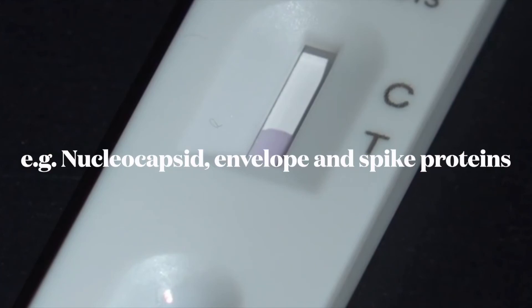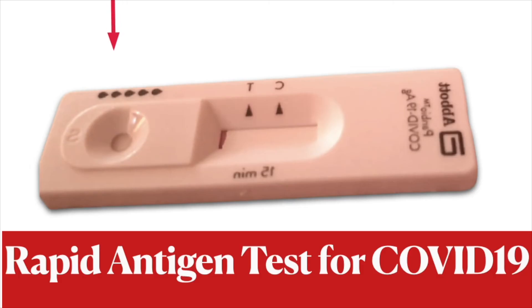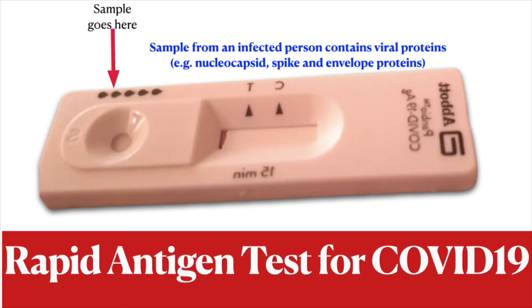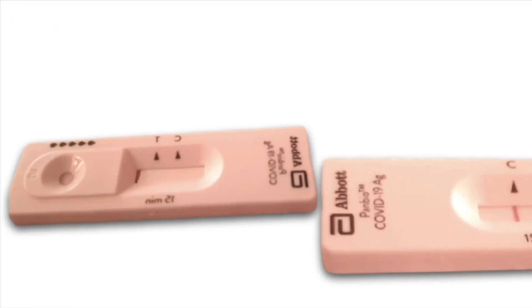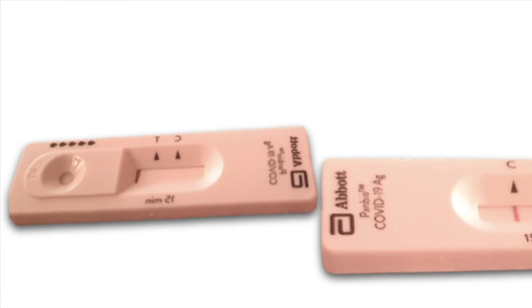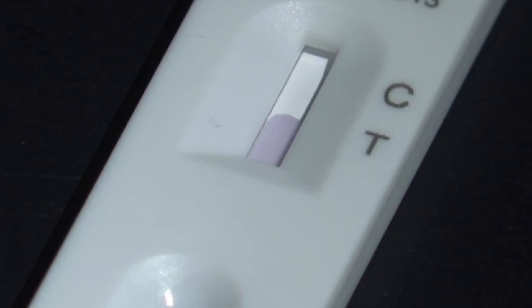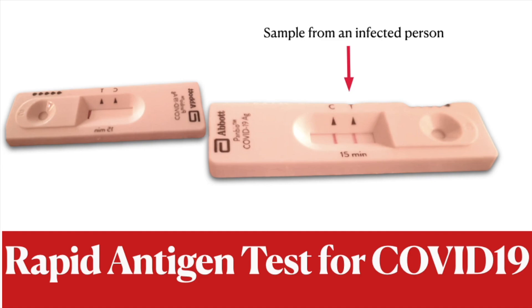If a sample did not have viral proteins — viral proteins can be the nuclear capsid, the envelope of the virus, or the spike protein that interacts with the antibody — then when it gets to the primary antibody conjugated to the colloidal gold particles, none of it will actually interact. So you're not going to get a band at the test area, but it will keep moving along and that antibody will interact with the secondary antibody at the control end, and so you will get that band coming up. That's how lateral flow tests or rapid antigen tests work — antibodies embedded on the membrane recognize viral proteins and give you a red band thanks to the colloidal gold particles conjugated to the antibodies.